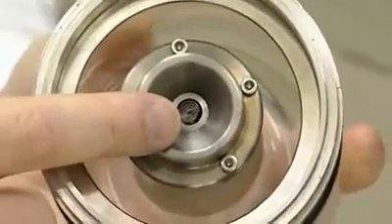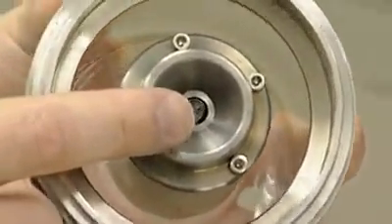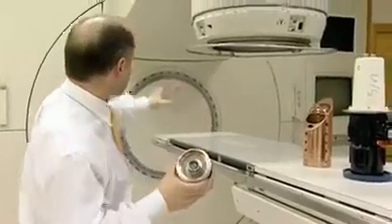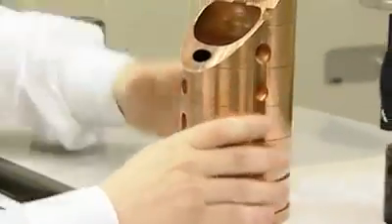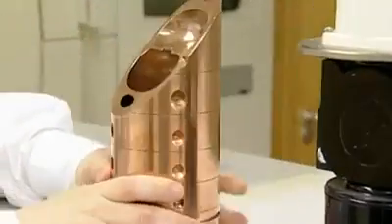If we start with the electron gun. The electron gun produces the electrons from this little grid, and this sits behind the wall of the accelerator. Now the electron gun is essentially, very broadly speaking, attached to this device.